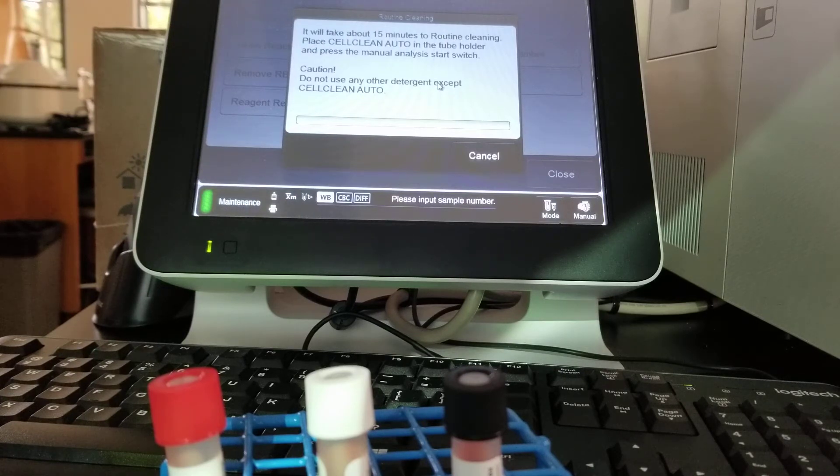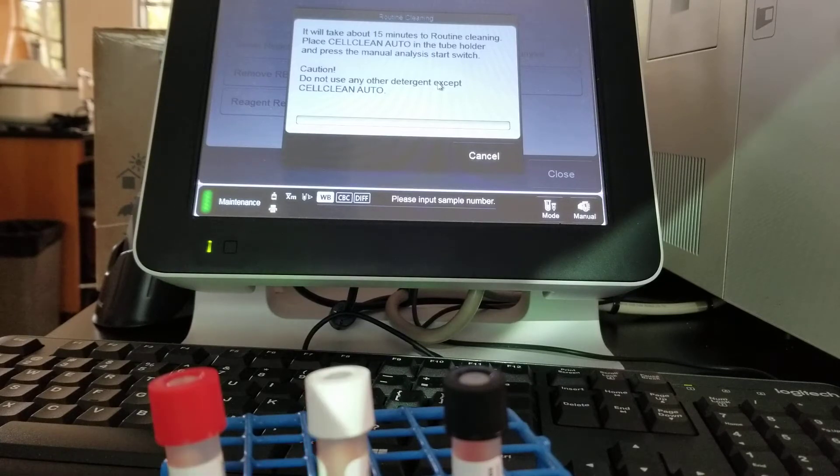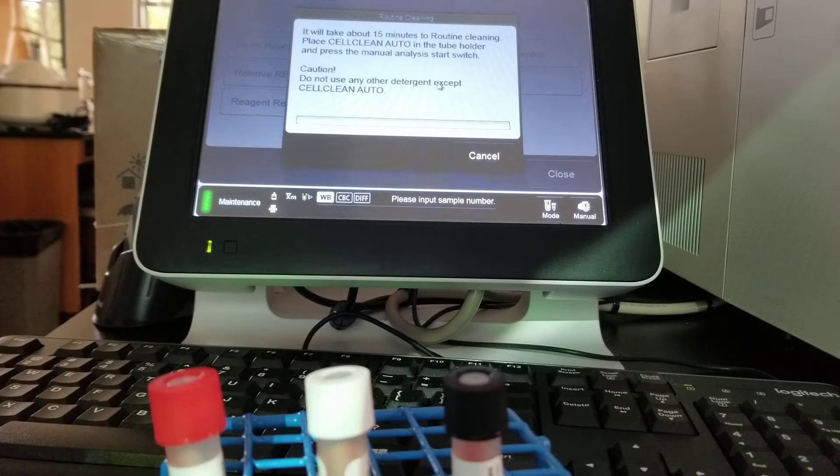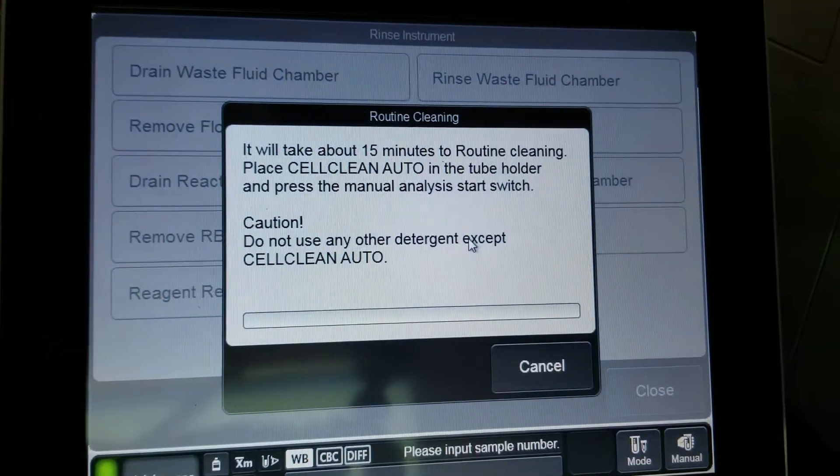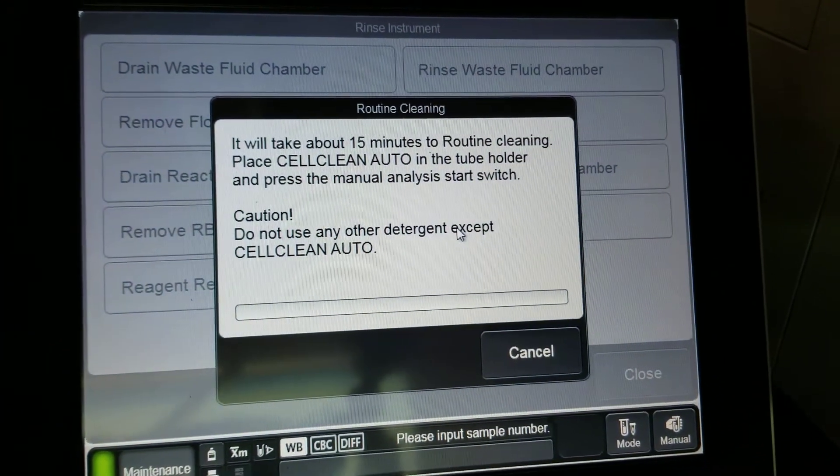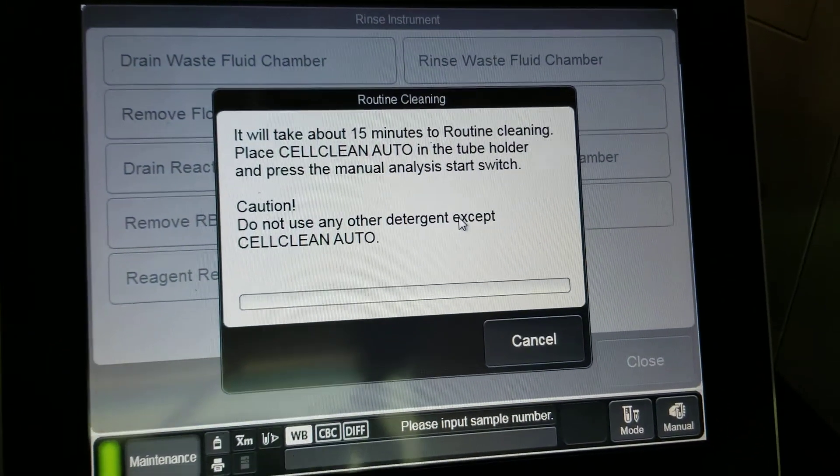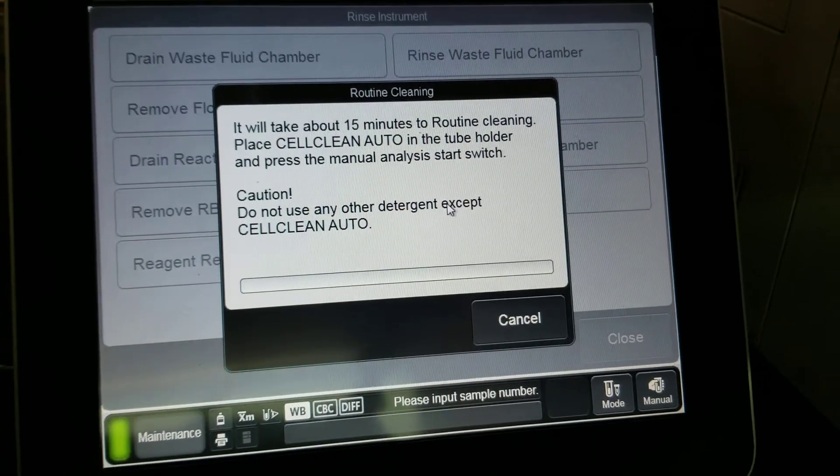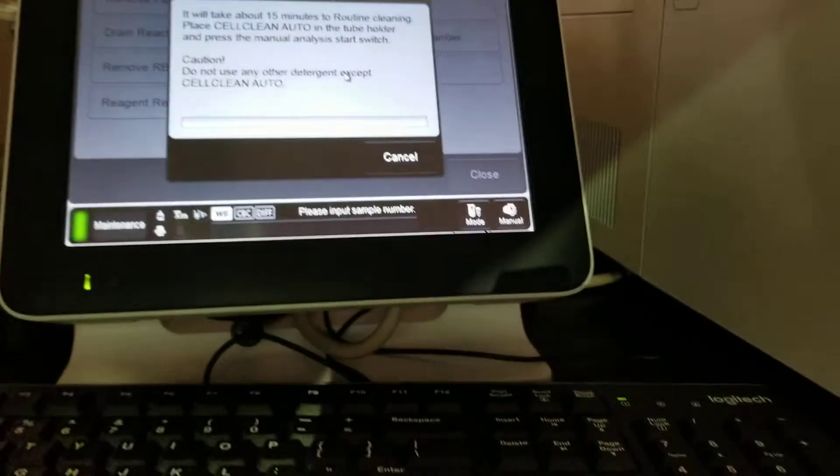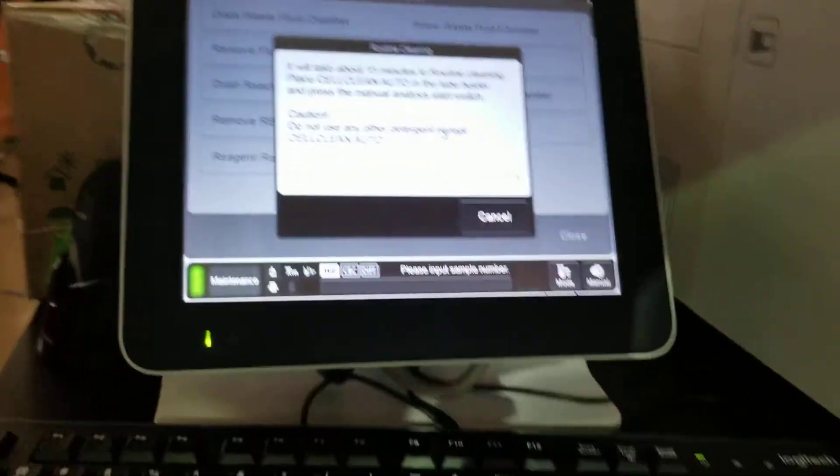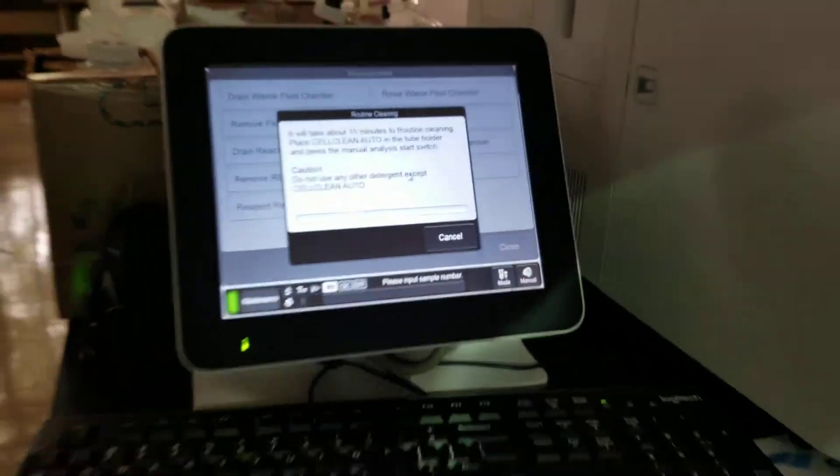You want to make sure that everything was done and that you don't have a specimen in the manual sampler holder. And we don't. So what we're going to do is I'm going to take you over here.